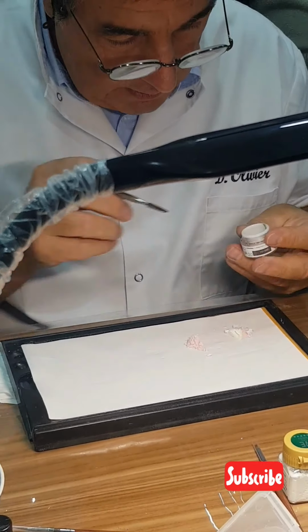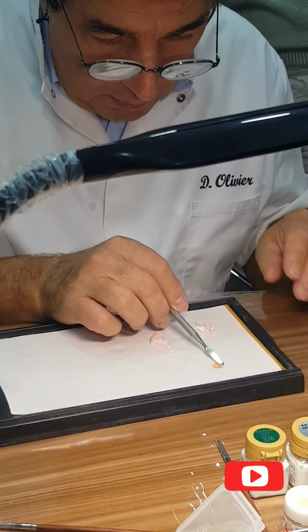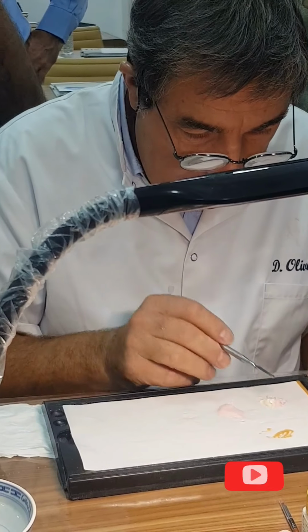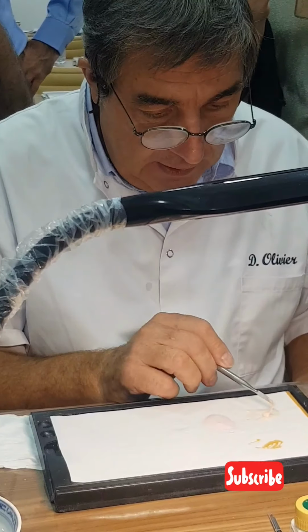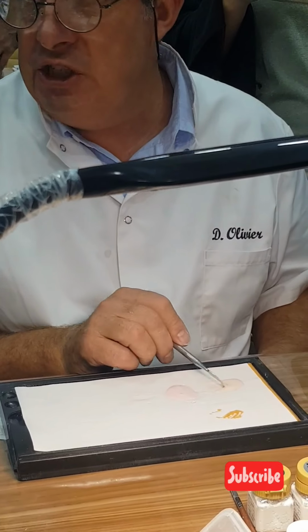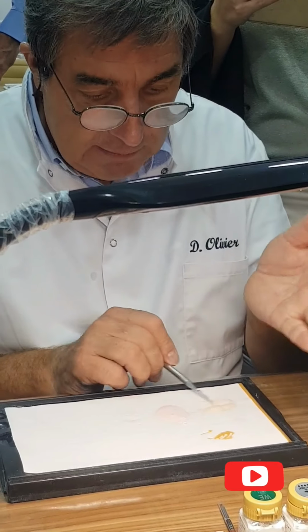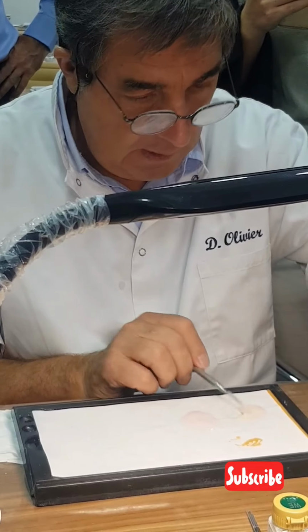For the root, always be with the body. Always the B color, always with B. The color for what we decide: orange or brown? Orange brown. But you have to check. Sometimes it can be yellowish, sometimes roots are brownish. But I give them the shade that is more often like that.